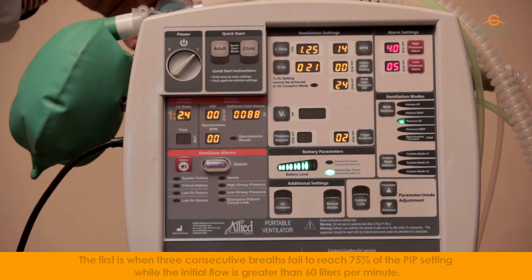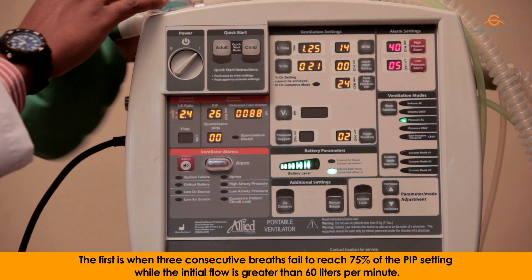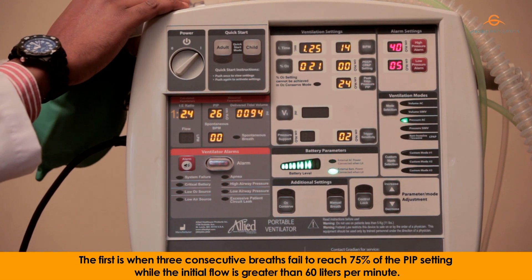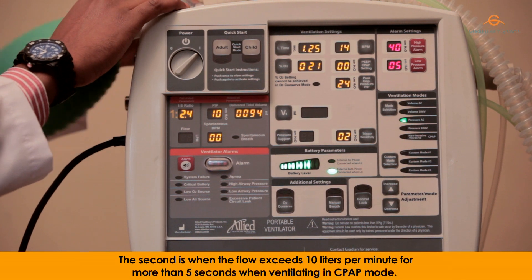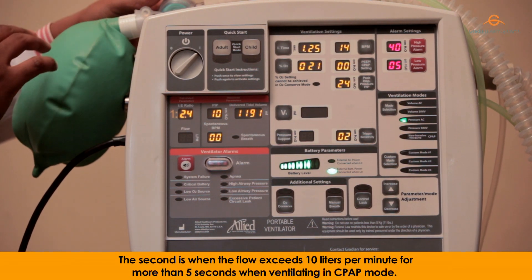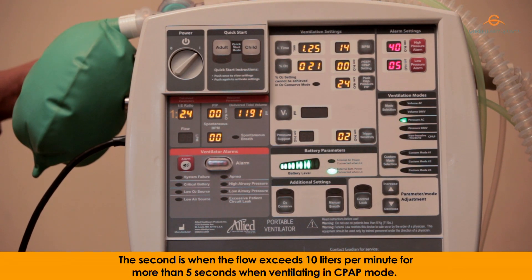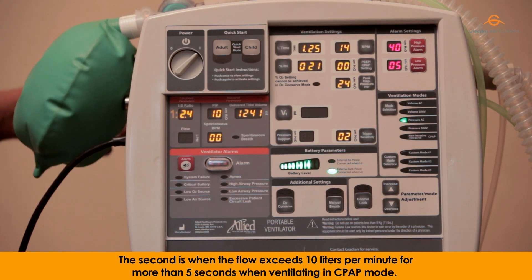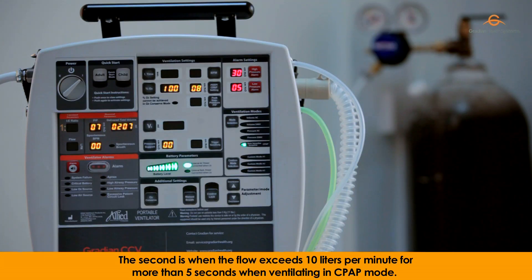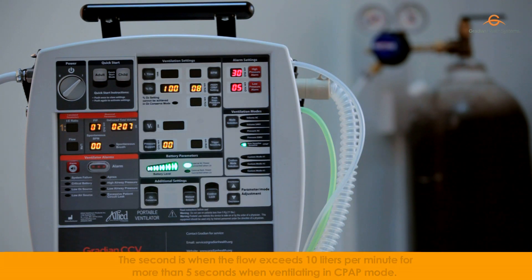The first is when three consecutive breaths fail to reach 75% of the PIP setting, while the initial flow is greater than 60 litres per minute. The second is when the flow exceeds 10 litres per minute for more than five seconds when ventilating in CPAP mode.